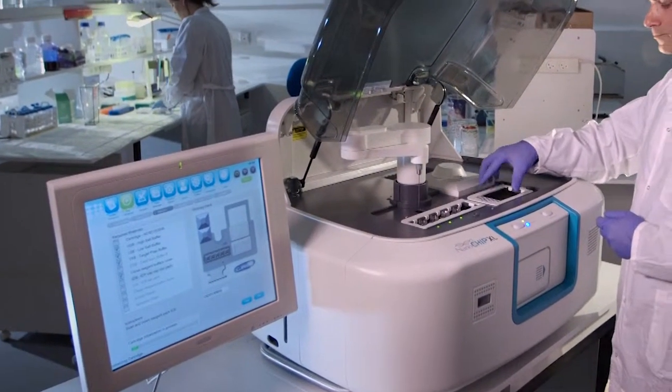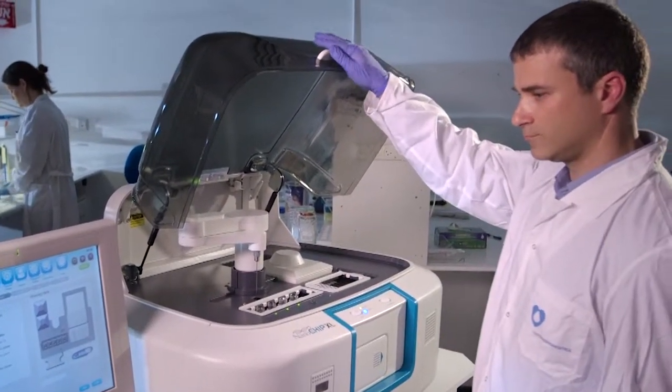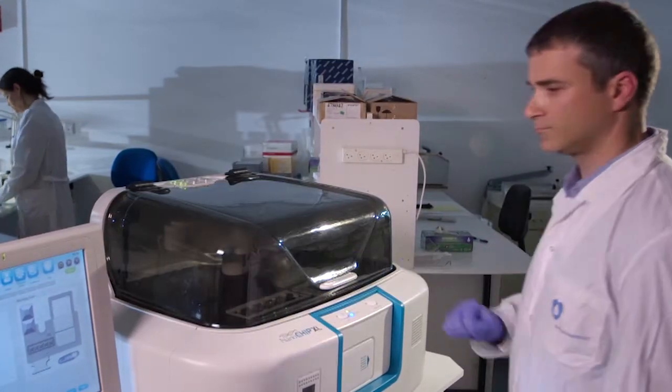The process is fully automatic and results will be displayed within hours for up to 96 patients in a single run.